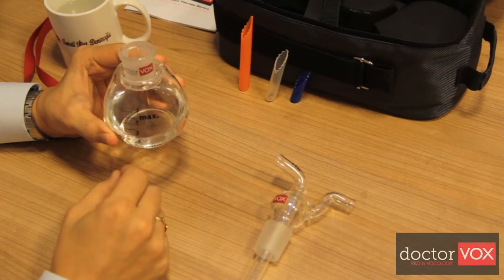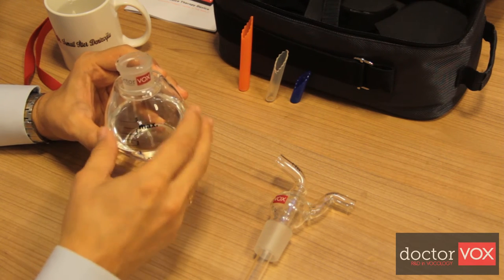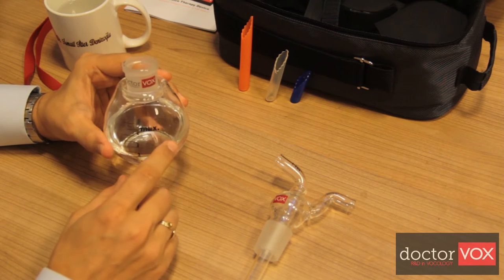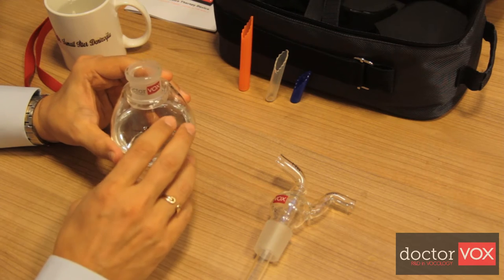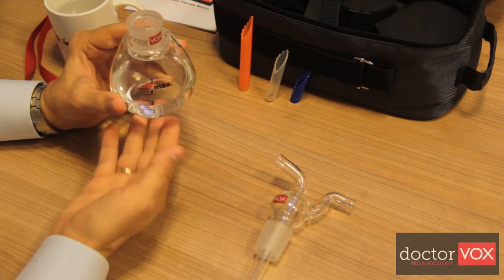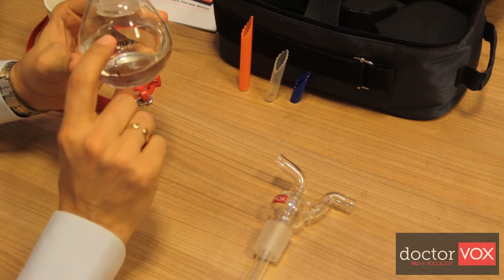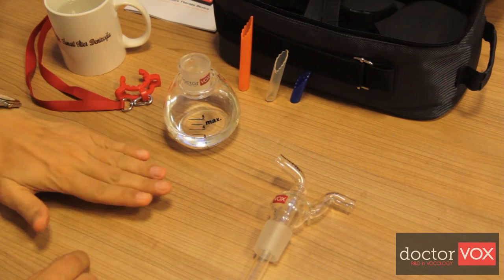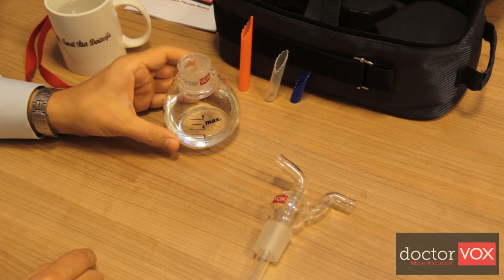The bottom part of the device, named the container, is filled with water for voice therapy exercises. Maximum water height is designed to be below phonation threshold pressure. The patient can use an exact back pressure by adjusting the water level defined by the clinician. There are levels marked on the device, and if you place it on a table, you can see the exact water level.